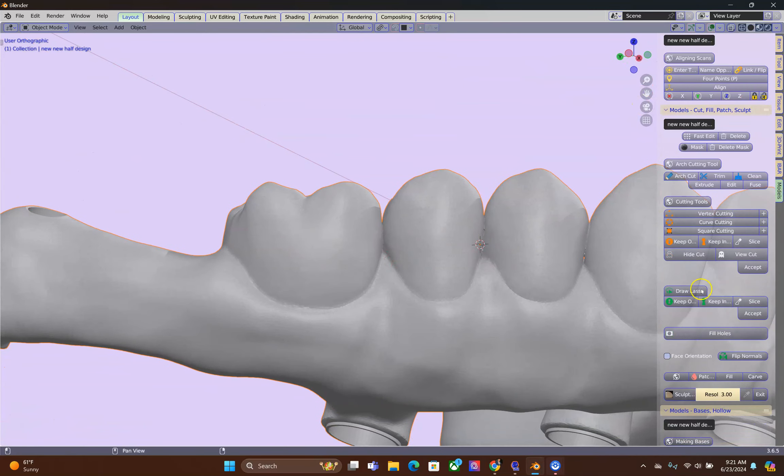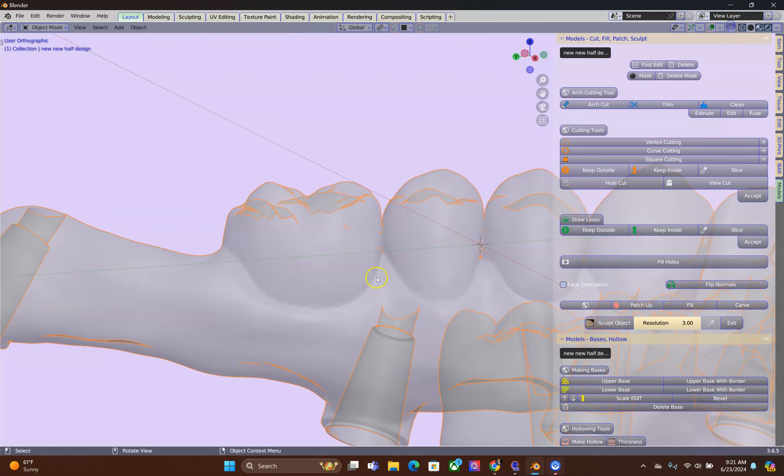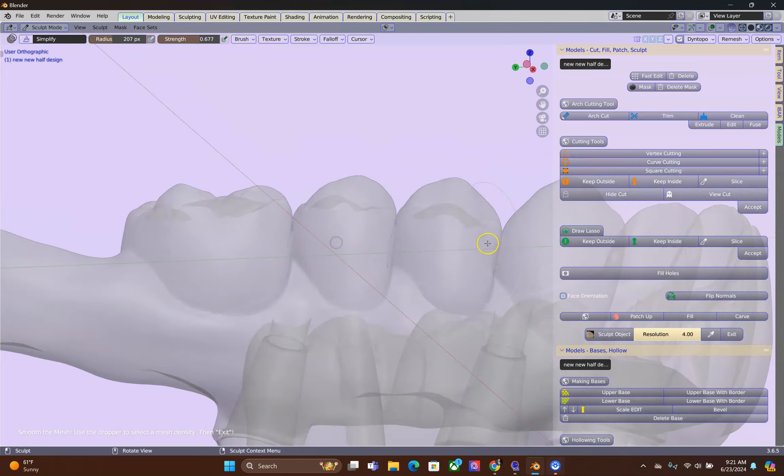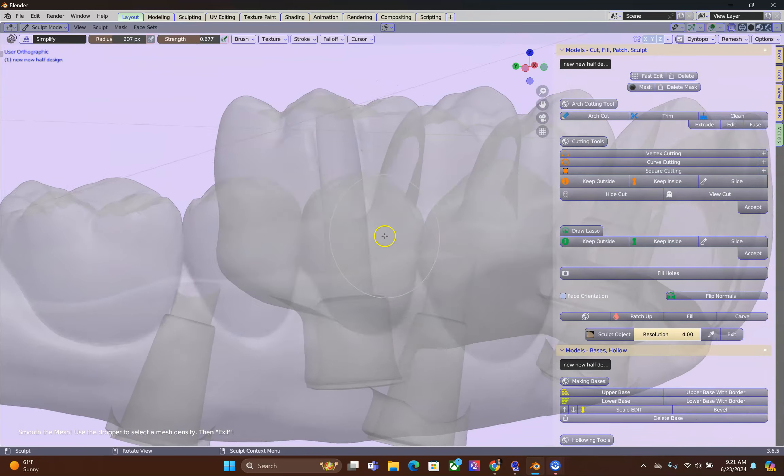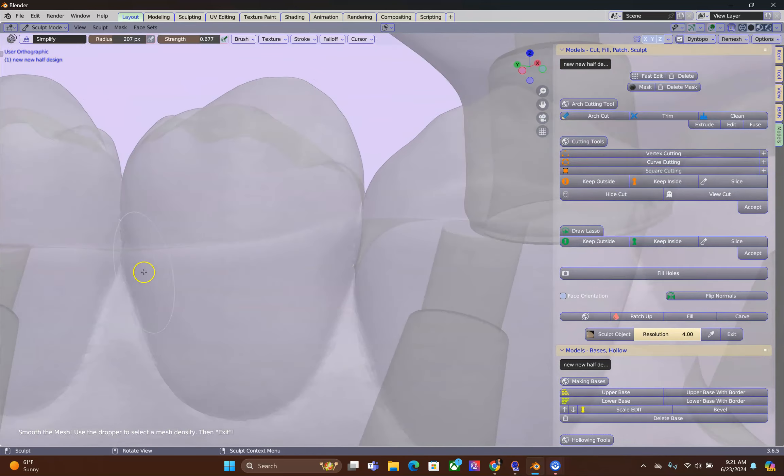Go to the model designer, go to the sculpt smoothing and we're going to smooth them. In transparent mode you will be able to see how it's going to change the contact areas.